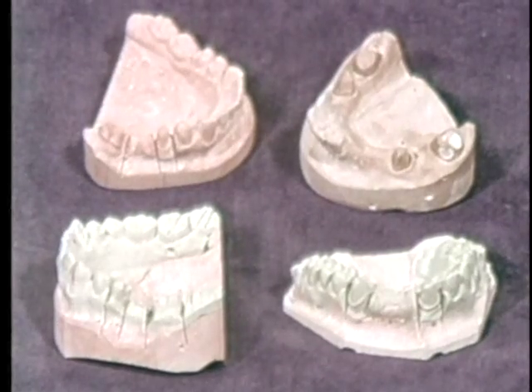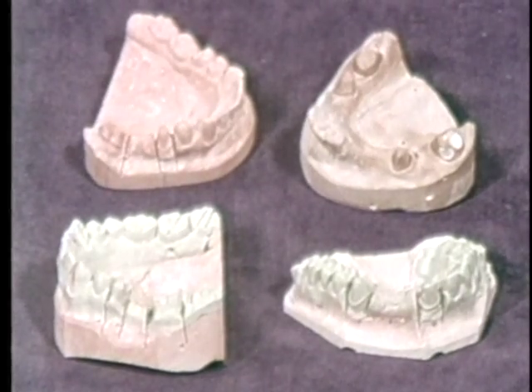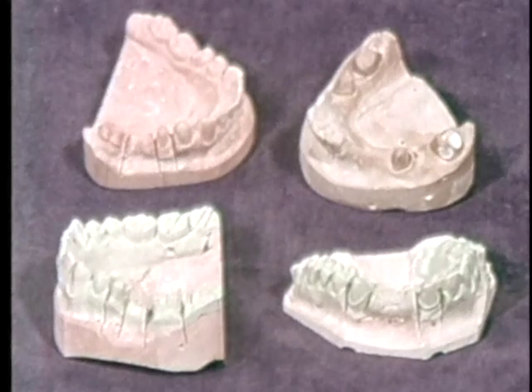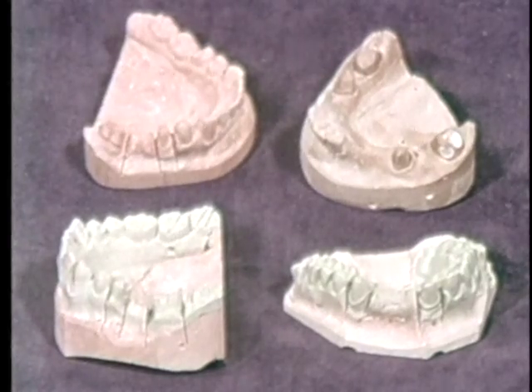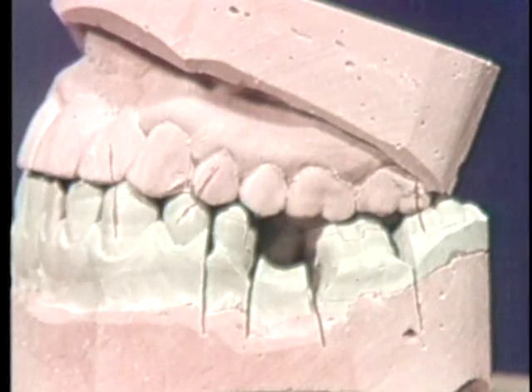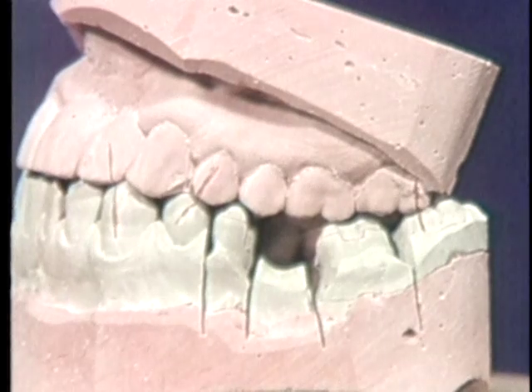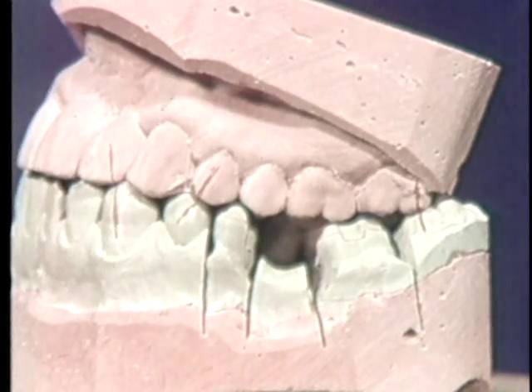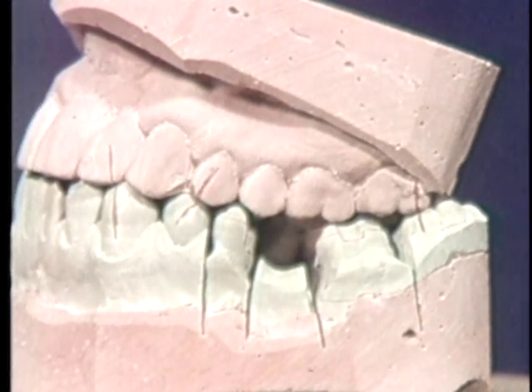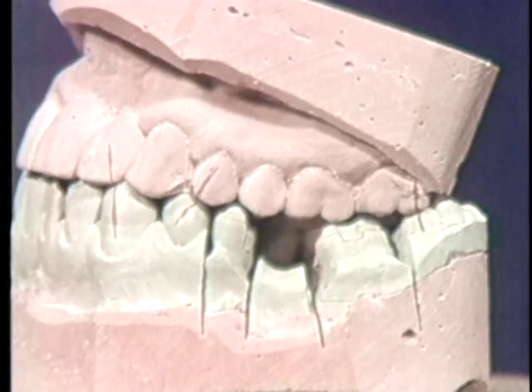When fixed partial dentures are required, there are four different dentulous and edentulous situations that are possible. If an appliance is tooth-borne and sufficient teeth remain in both arches, records are unnecessary.